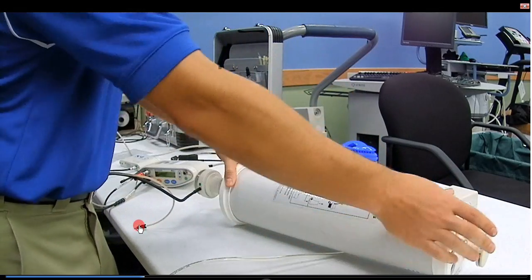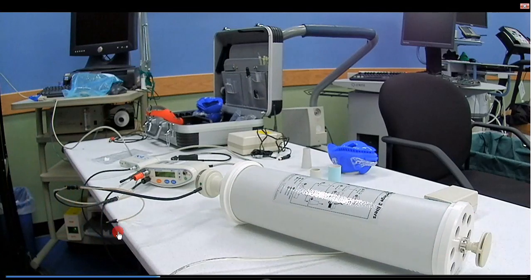Now I want you to notice here the flow line is out. It needs to stay out throughout this calibration.